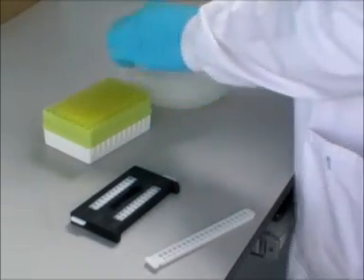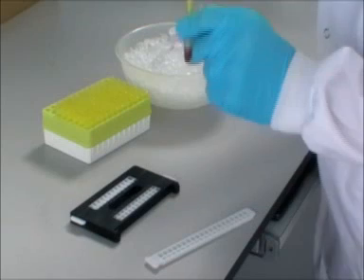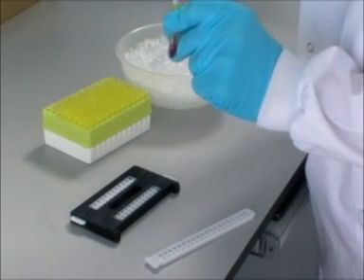35 microliters haemoglobin samples are loaded into the appropriate wells of the disposable sample tristrip.